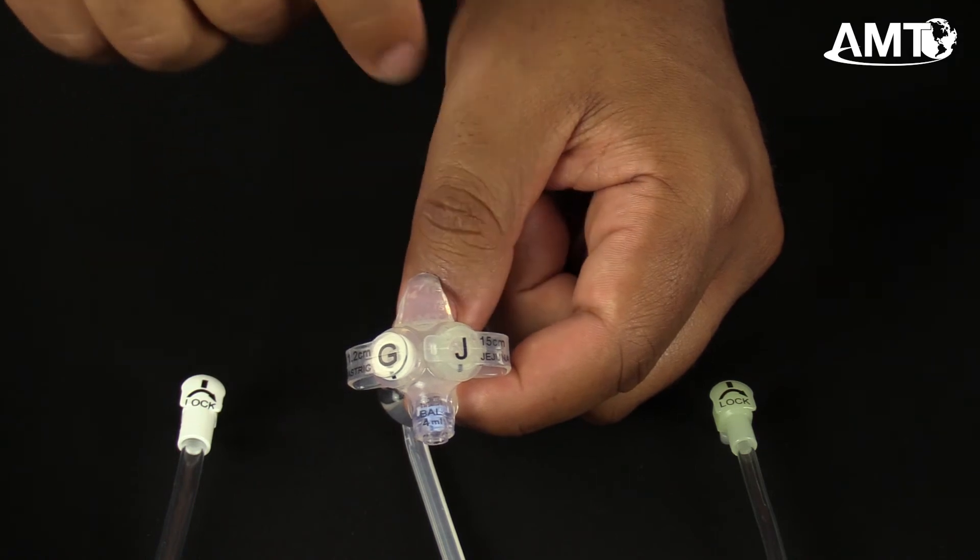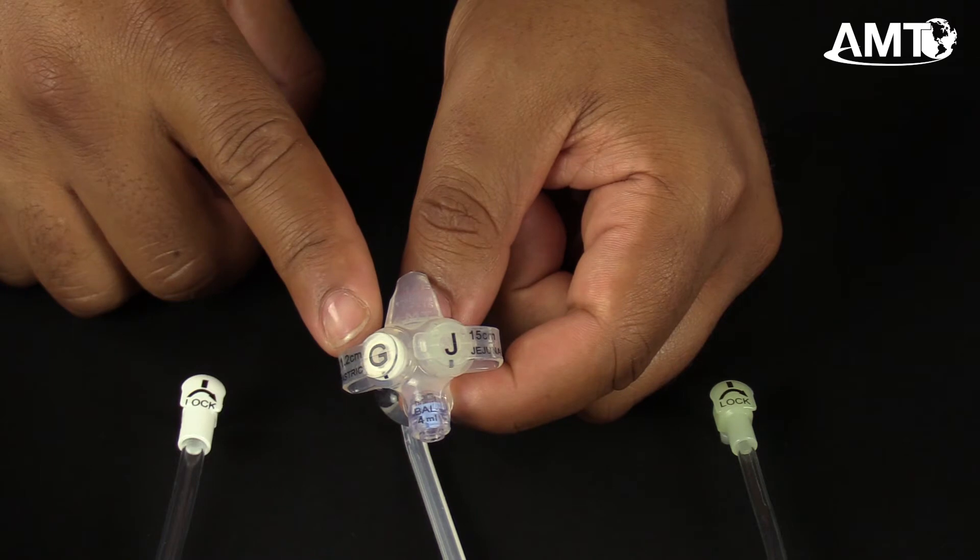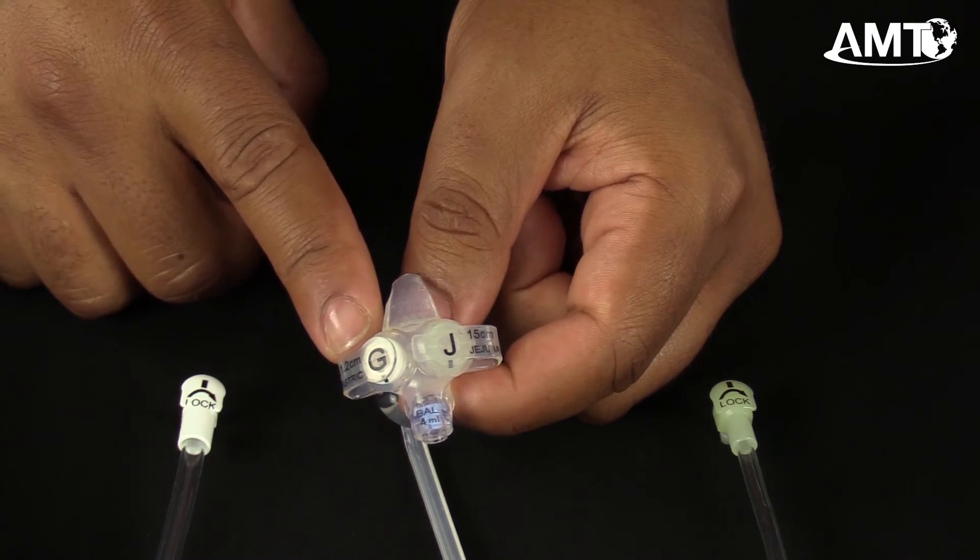And two safety plugs. The gastric safety plug features a rounded strap with a capital G and the gastric link clearly pad printed on the strap.